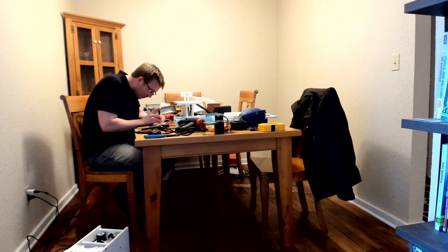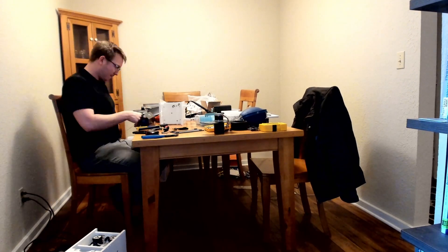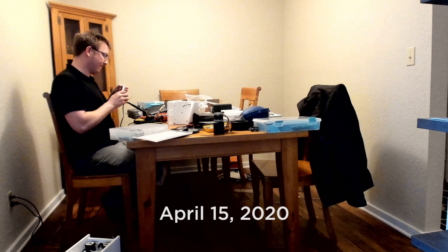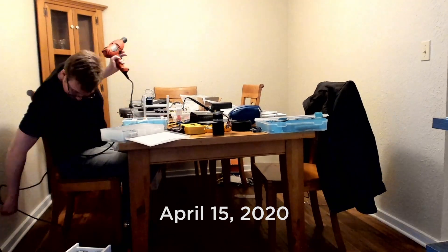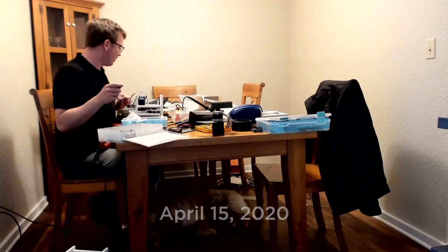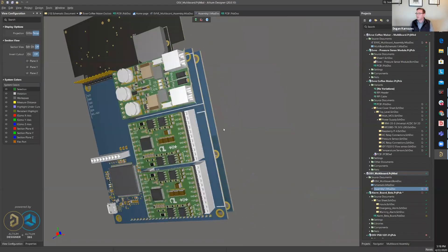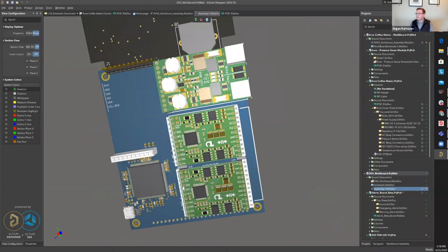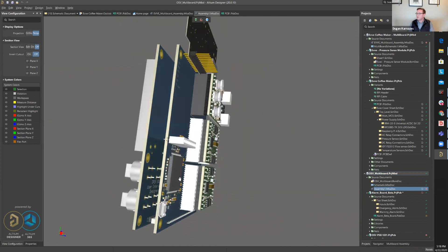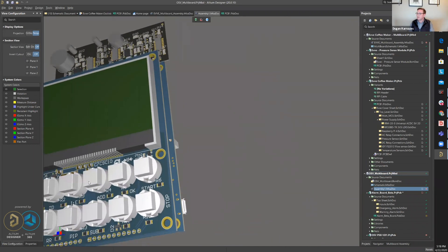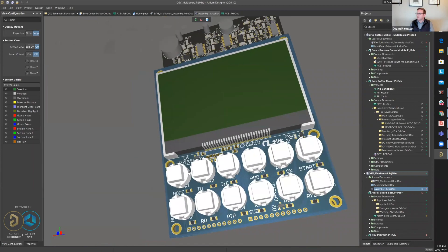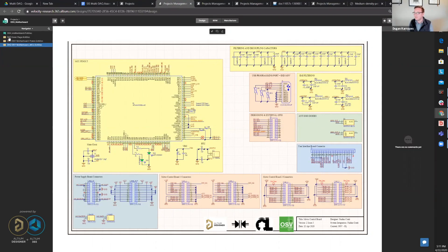The design is just about ready. We're going to build them. All the hard work is paying off and it's becoming tangible and it's becoming usable. Here's our multi-board electronics assembly — a ground-up design developed by the global and local open source ventilator team.